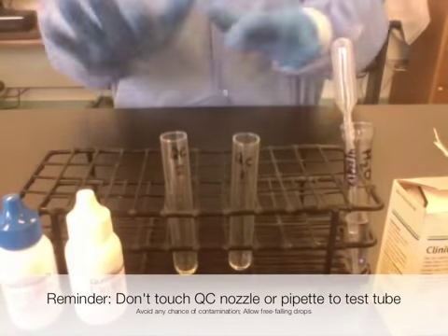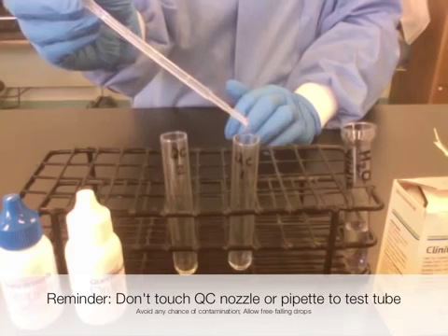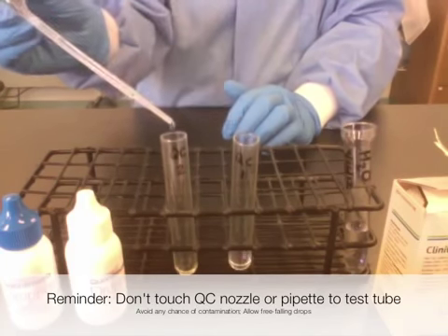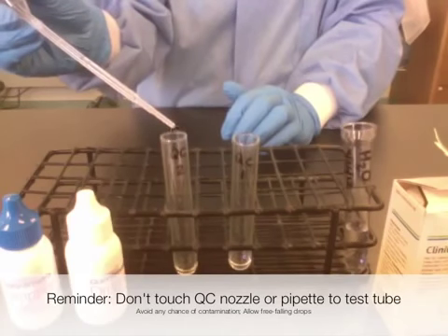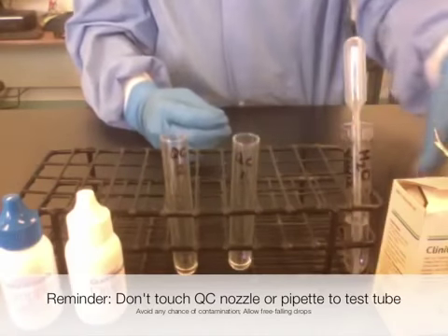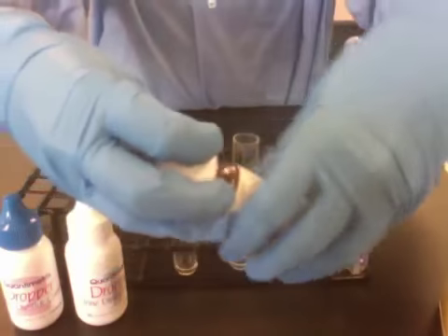After you add your specimen, you're going to add ten drops of water. After I add my specimen and water, I'm going to add the Clinitest tablet.